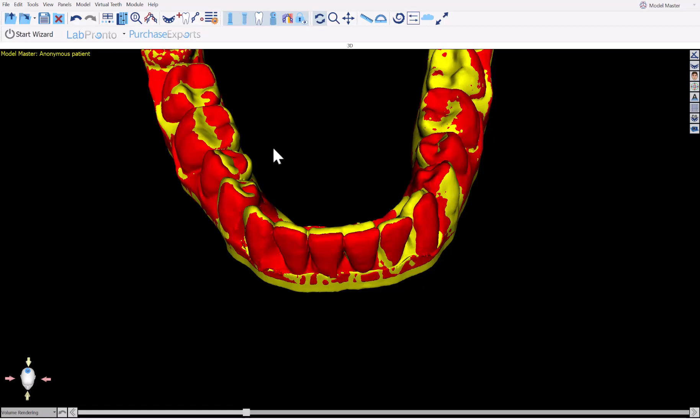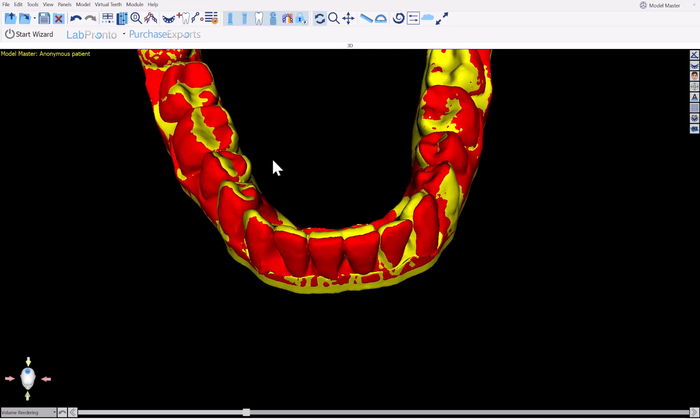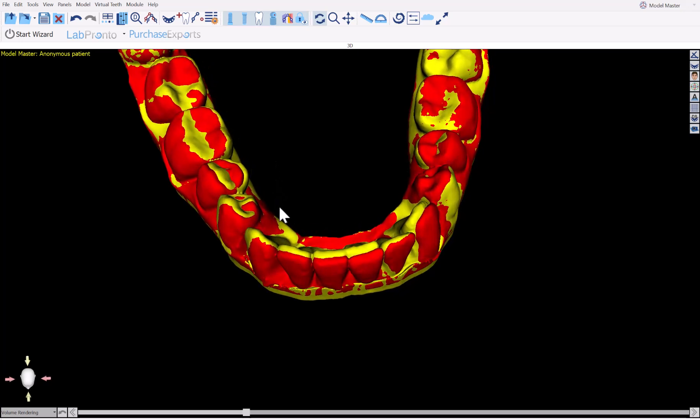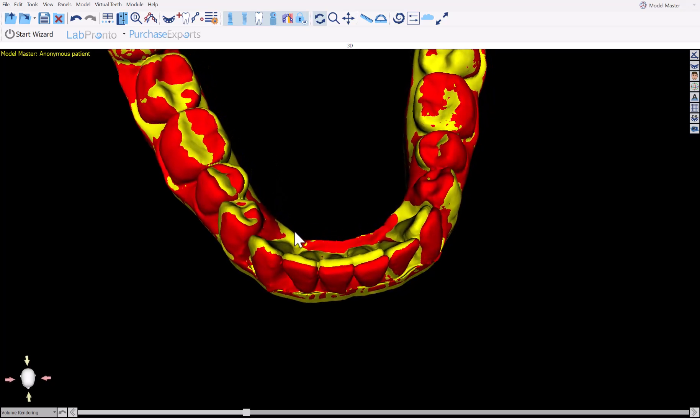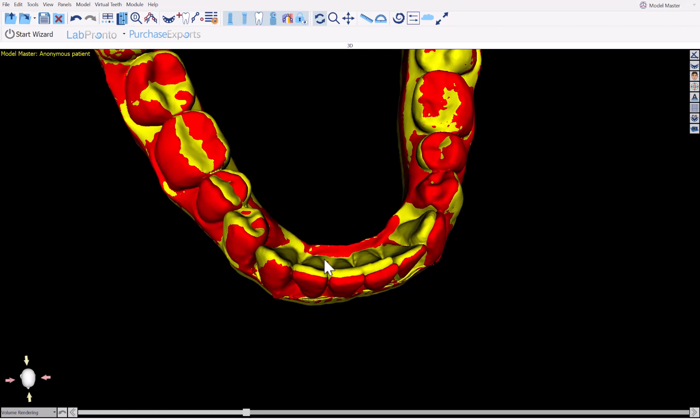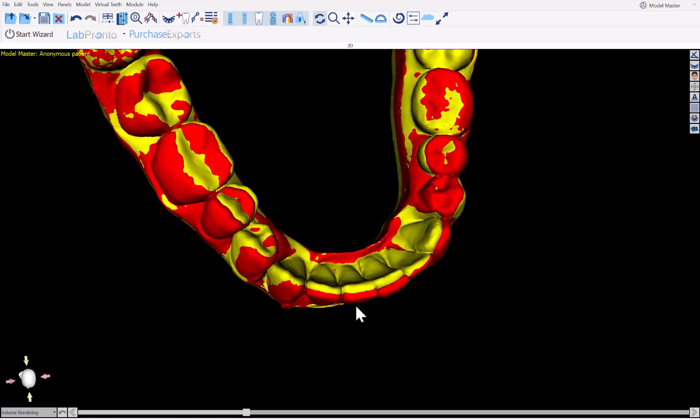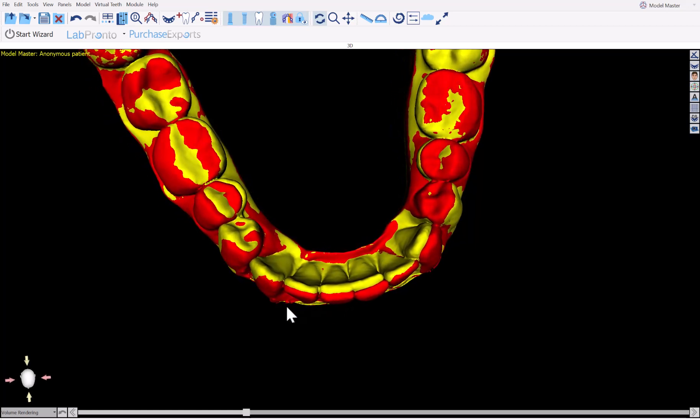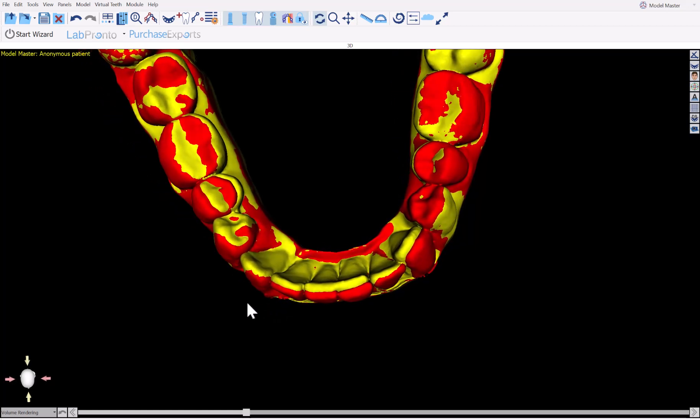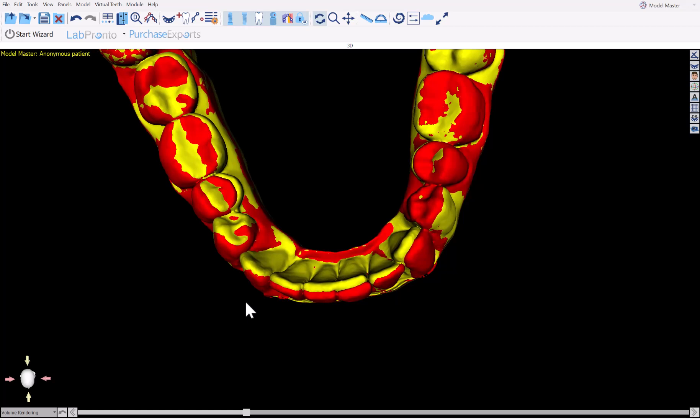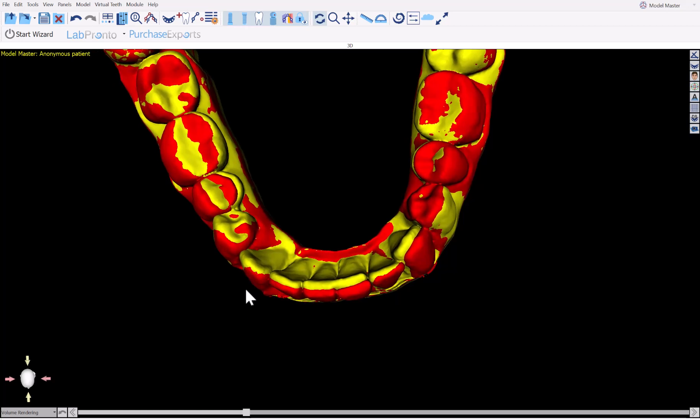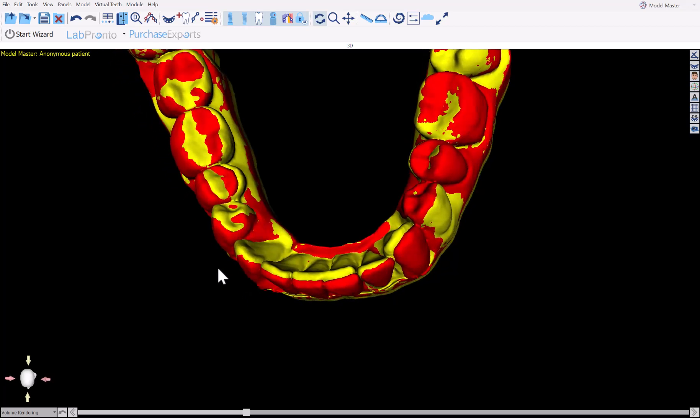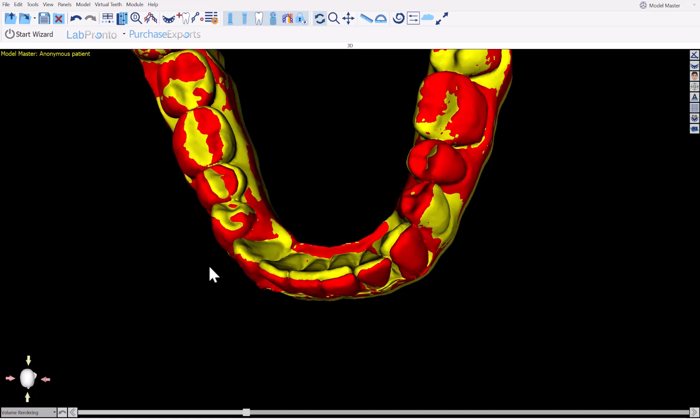This is a major cause for mid-course refinement cases. There are two models visible on the screen created from exactly the same optical scan for exactly the same patient. Both these models are models created by aligner software for aligner manufacturing, but the models are different and the teeth are in different positions.